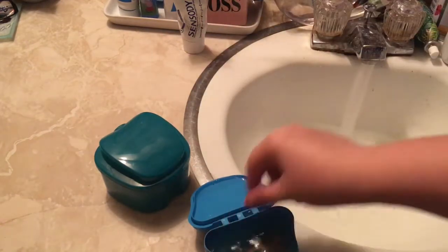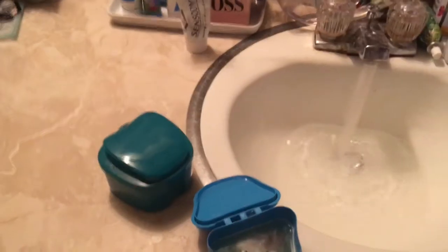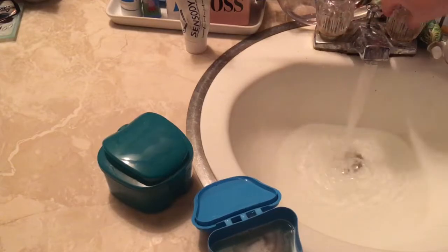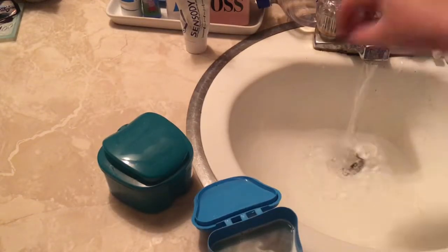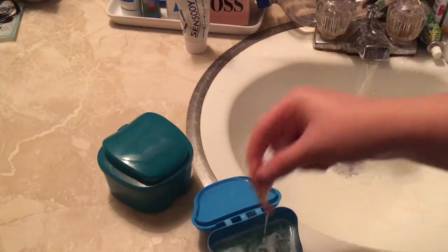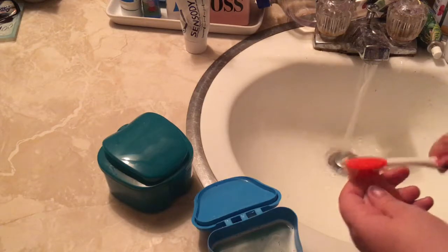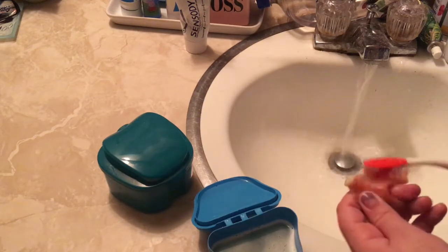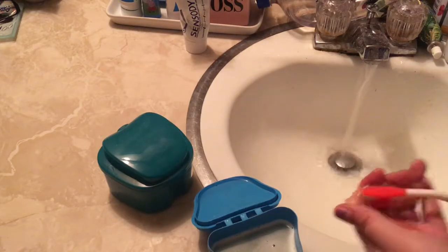I haven't needed more tablets yet because the box from Walmart was big, and usually when I go to my dentist he gives me more anyway. Dollar Tree also has Fixodent, but I don't even use it — I just keep my flipper at the roof of my mouth.